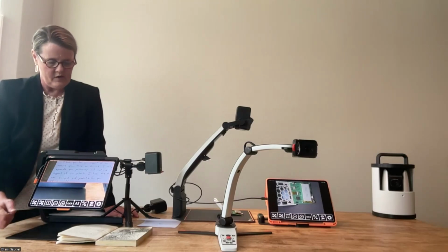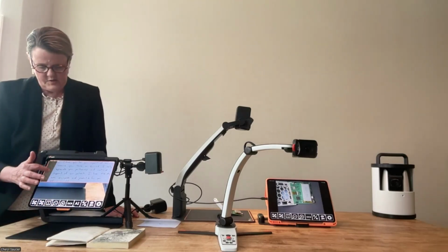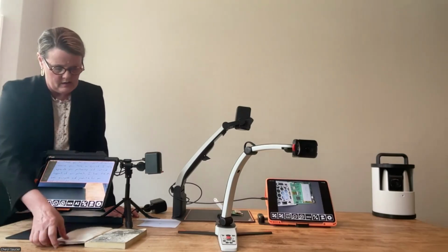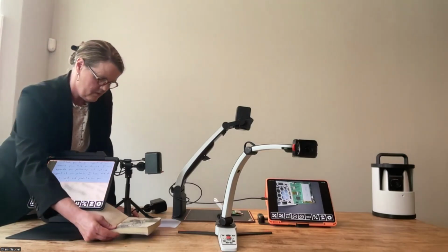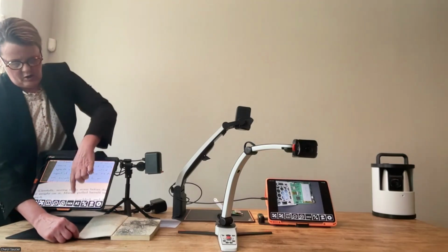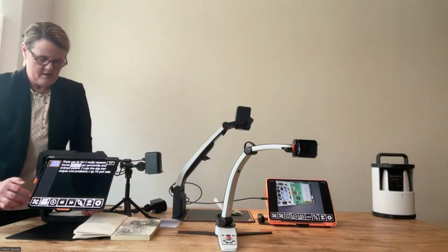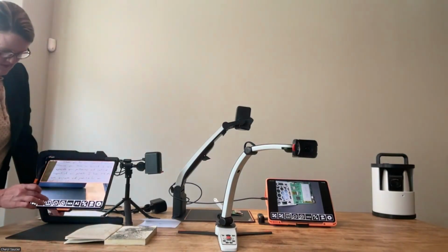The other thing I wanted to show is you can also have a split screen. On the top, I'm using the Magnilink Mini, and then here on the bottom, what if I needed to use that iPad camera? So I'm going to put some content right under there and hit my OCR button. I think I got it a little bit blurry, so let me try it again. Let's see.